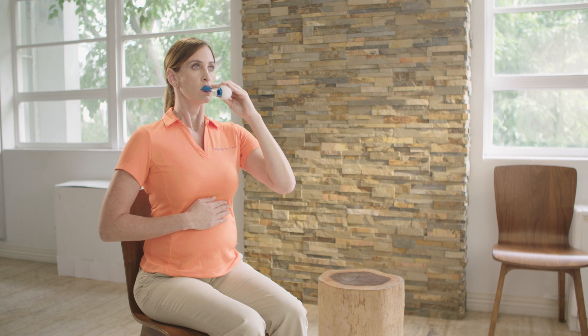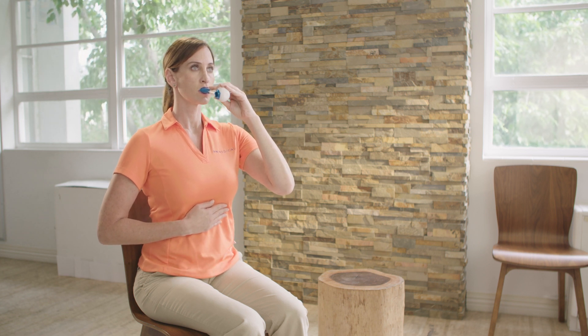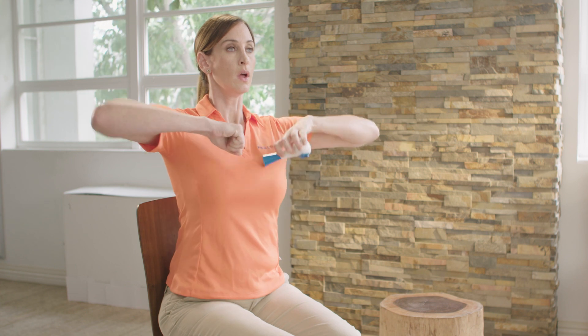You may even combine your RMT with the Huff-Cough Maneuver. This can be done by completing four to six breaths through the Breather. We know that expiration against resistance will assist in clearing airways. Follow with two to three Huff-Cough maneuvers, and repeat as needed.